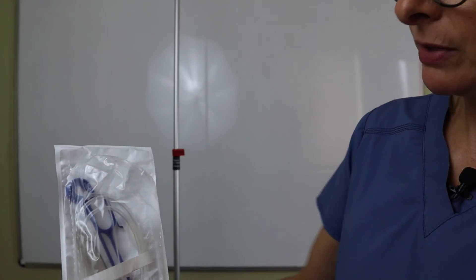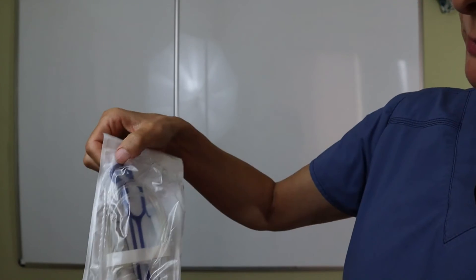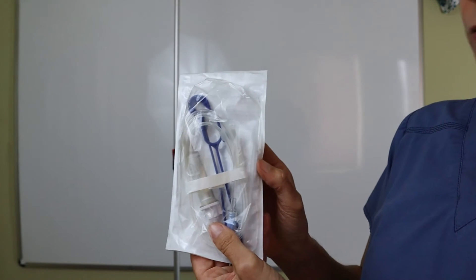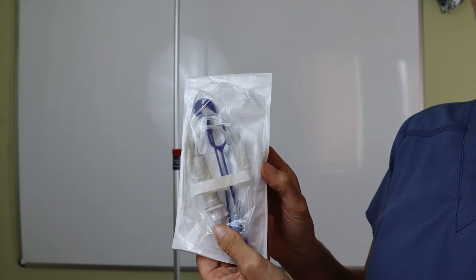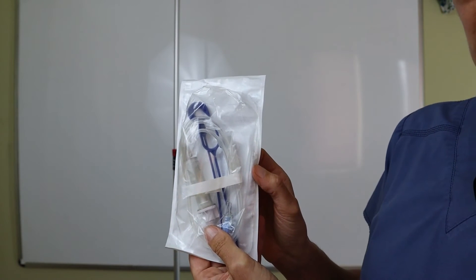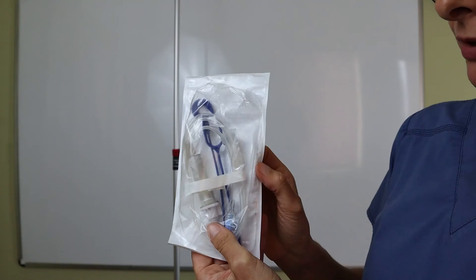The secondary set always comes with this little hook that allows you to piggyback it to the primary set. Check out my separate video that goes into that.